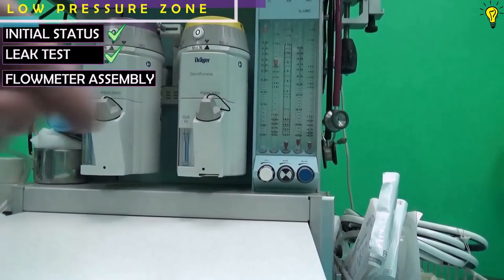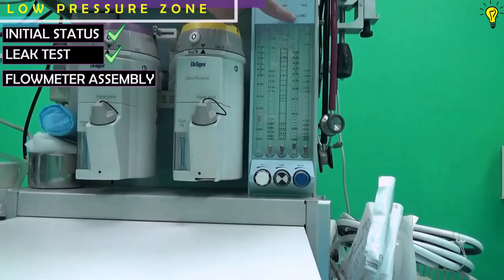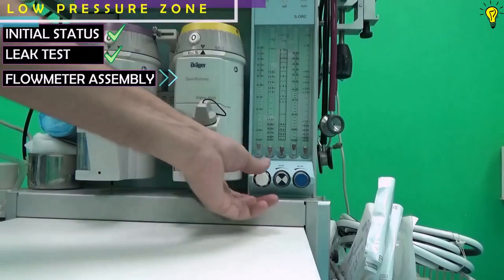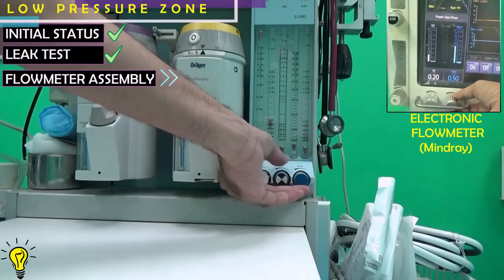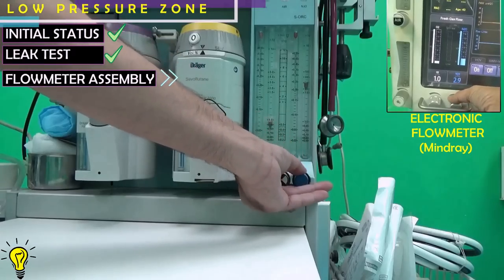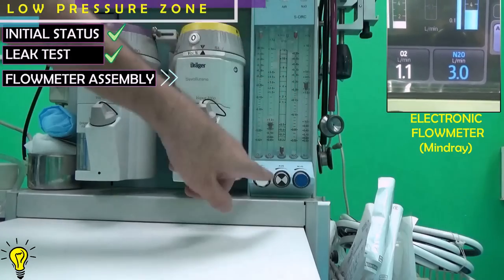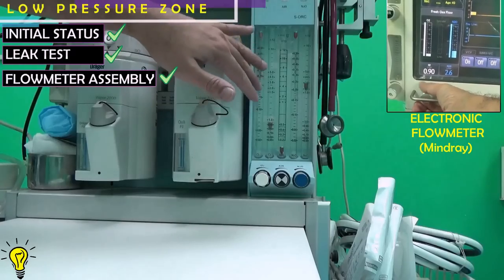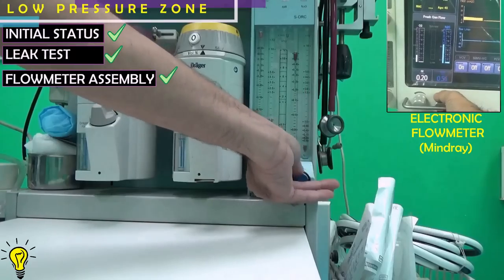Next, we are going to attempt to create a hypoxic mixture to test the oxygen-nitrous oxide ratio controller. Setting oxygen at 1 liter and increasing nitrous oxide to the maximum — you can see that the nitrous oxide is not increasing beyond 3 liters. So a 1:3 ratio, or greater than 25 percent fraction of oxygen, is properly maintained. Now turning off the nitrous oxide.